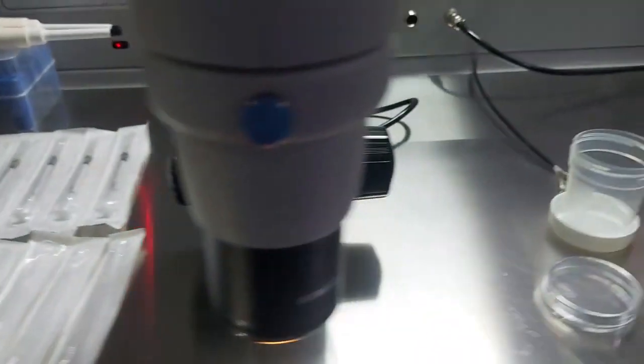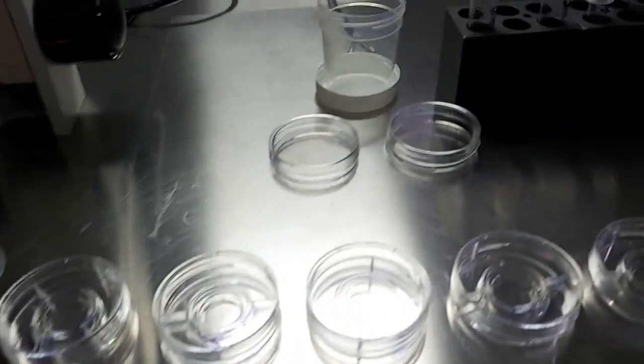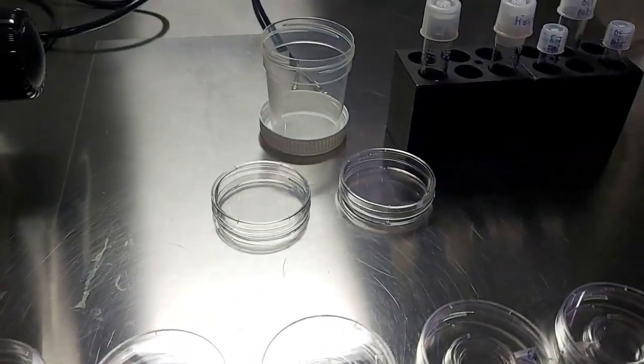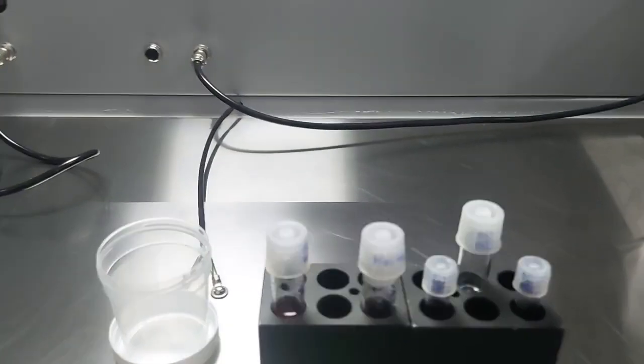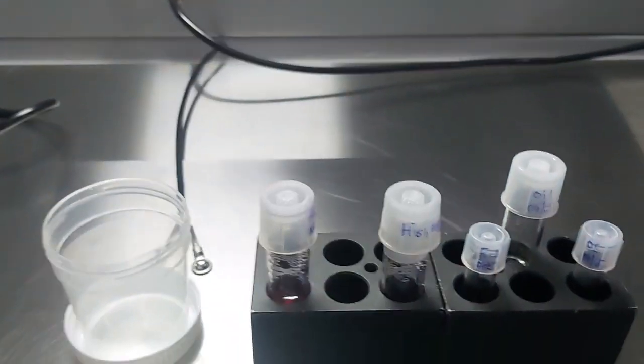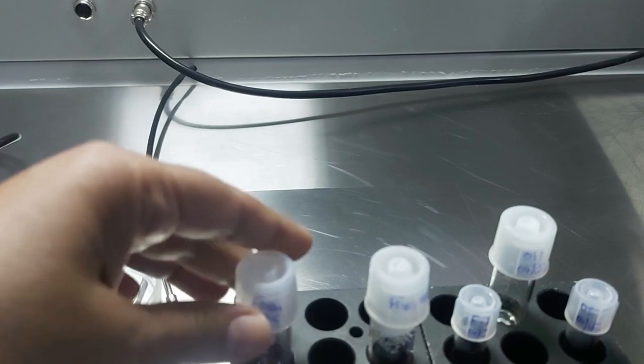The stage is heated. Laminar flow was on 24 hours before. Media was kept in incubator 12 hours before. This is flush media.